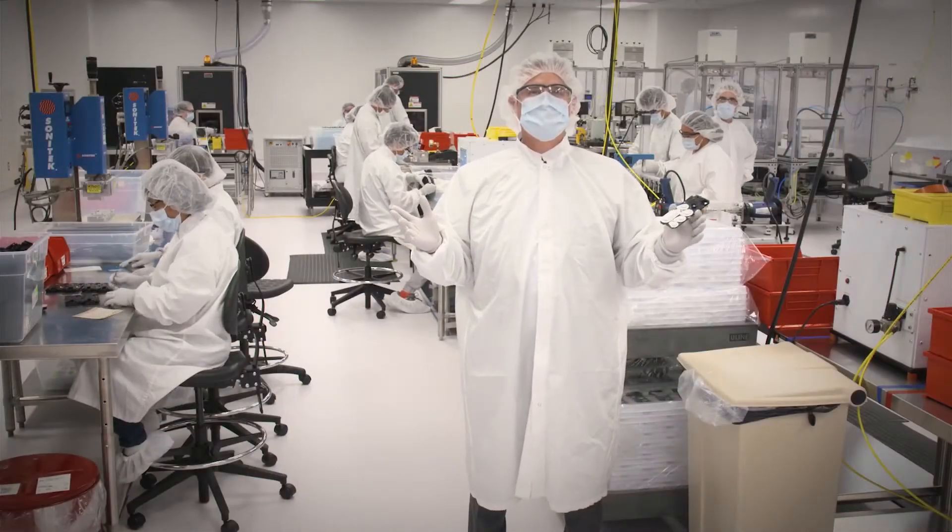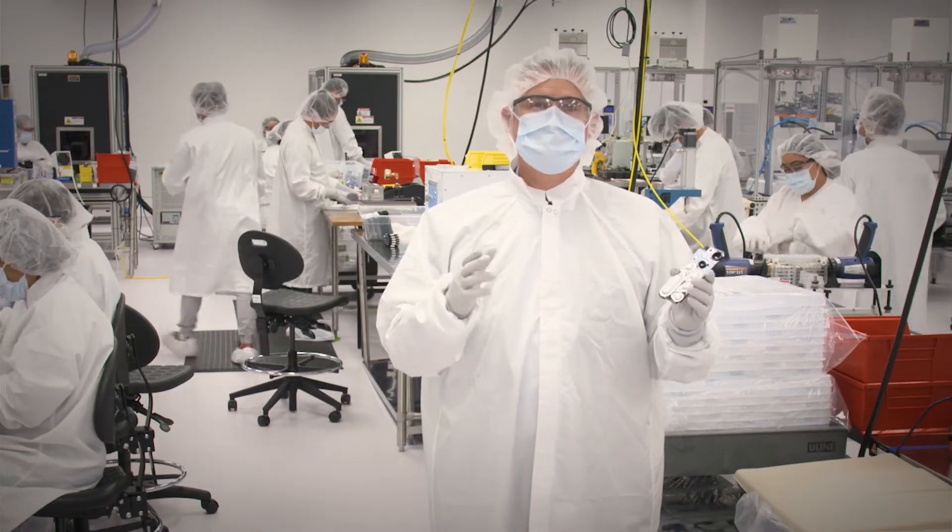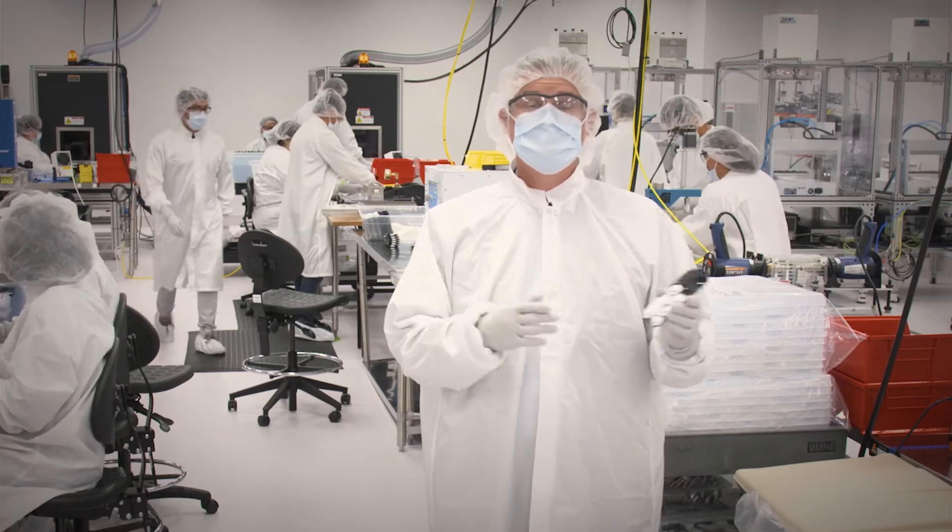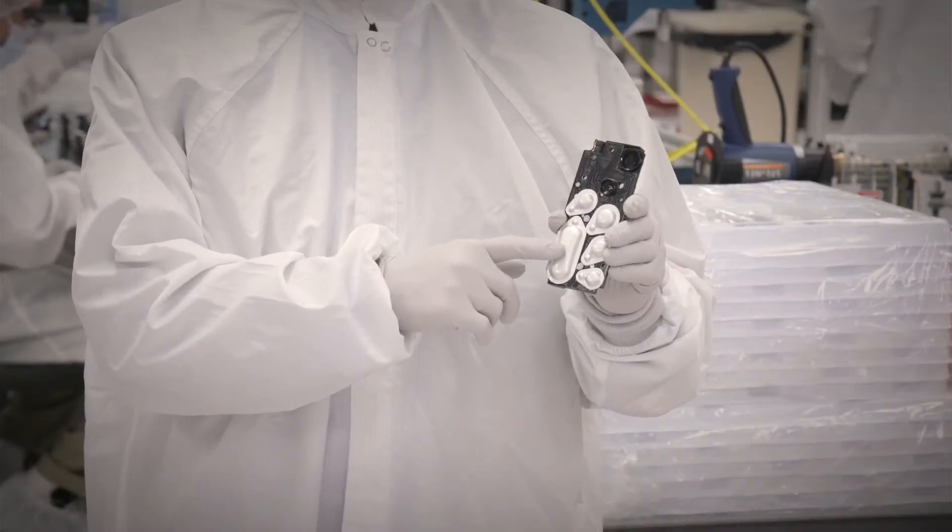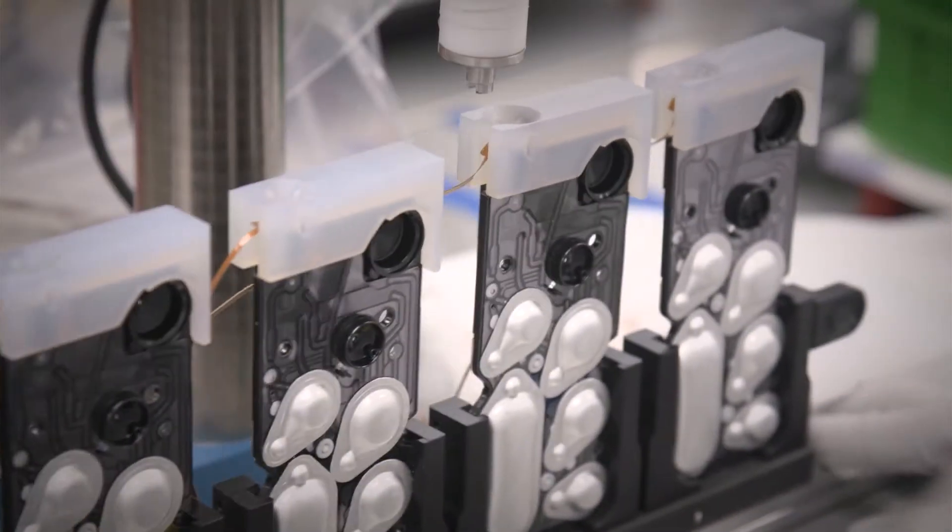Welcome to the LRM room where we assemble the LRMs. The LRM enables movement of the patient sample through the nucleic acid purification process. The LRM also includes foil blister packs containing liquid reagents such as lysis buffer and wash buffer which are required to process the cartridge.